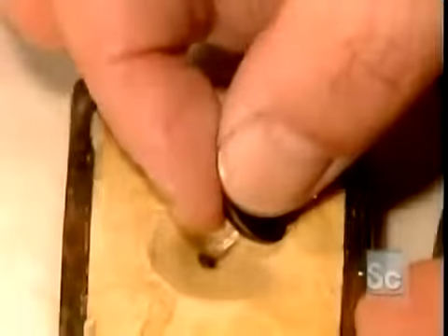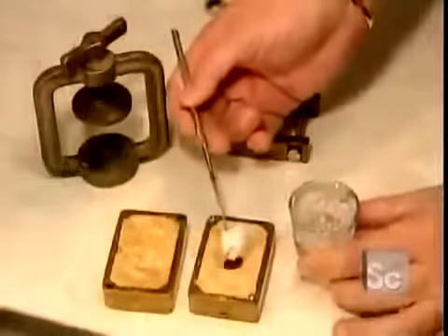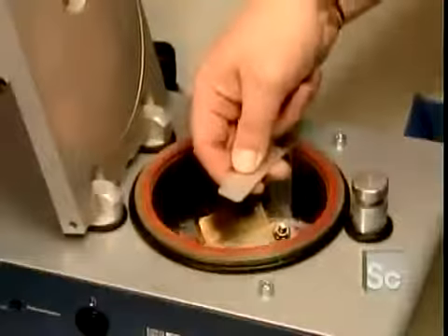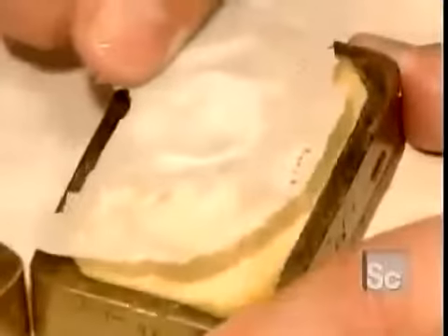The iris then goes into the plaster mold, covered with white acrylic dough. After the same high-pressure curing process as before, out comes the artificial eye, covered with excess white acrylic.